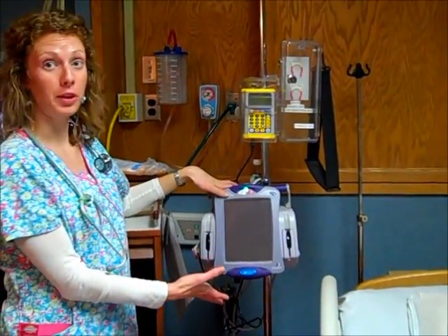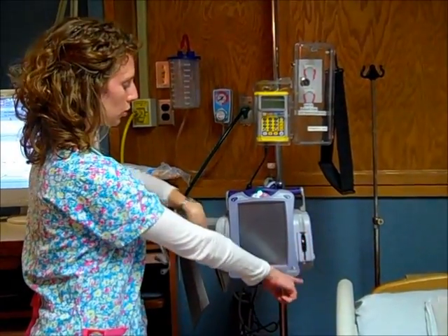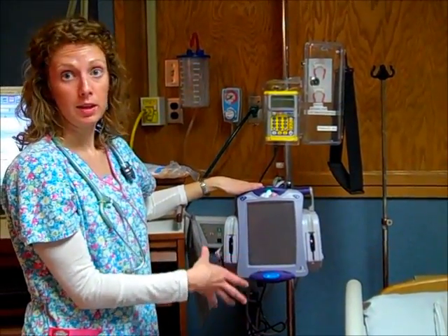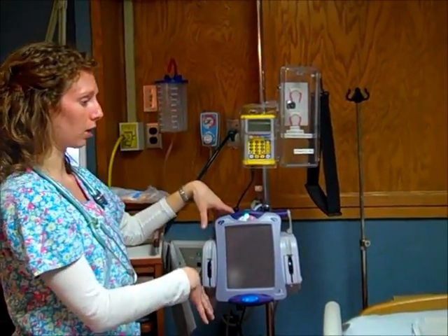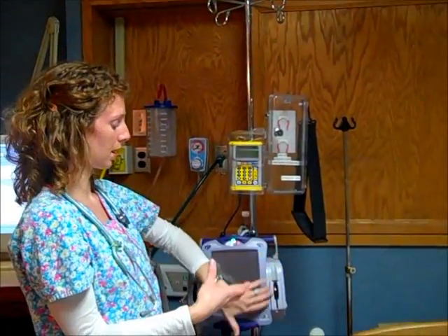You all are familiar with an IV pump. They may look different at different facilities, but this is a basic dual chamber IV pump, because your labor patient may need to be getting fluids. The common fluid for infusion on a labor unit would be something called lactated ringers, or LR. So they may have a line of that going. They may be an induction, so they may have a line of Pitocin going in another line.